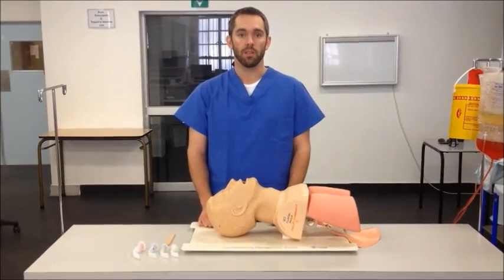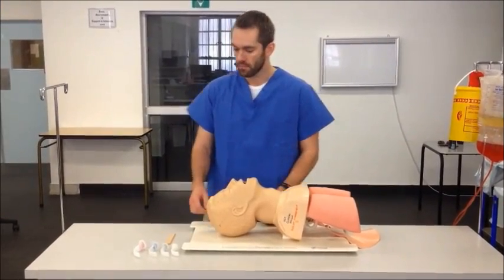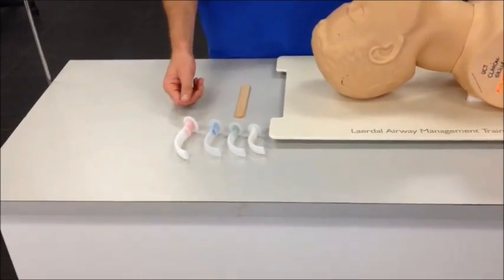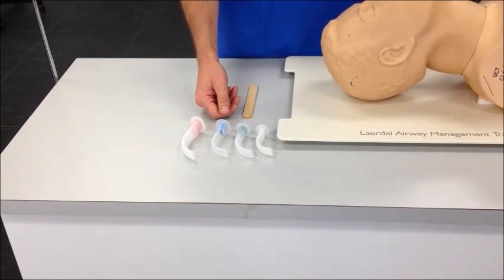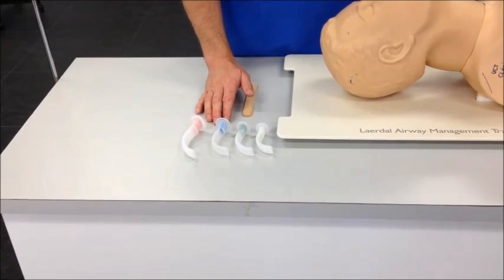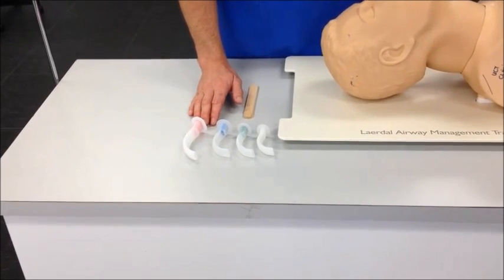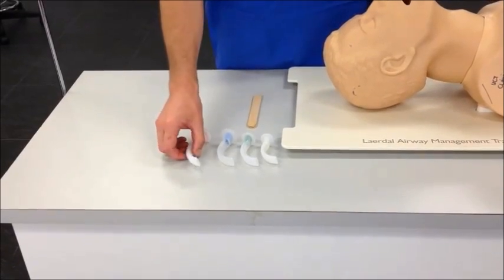The first step would be to select the correct size of airway. We can see here a selection of airways of different sizes. Please note that they are color-coded differently, but manufacturers use different color codes, so select the size correctly for your patient every time rather than relying on a specific color.